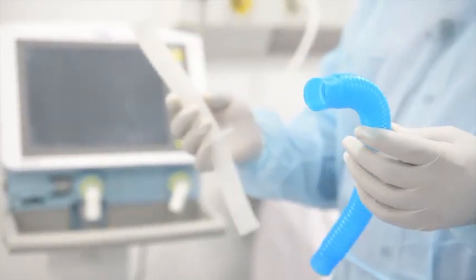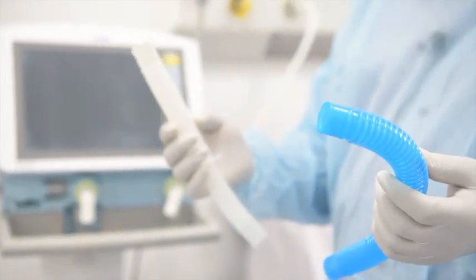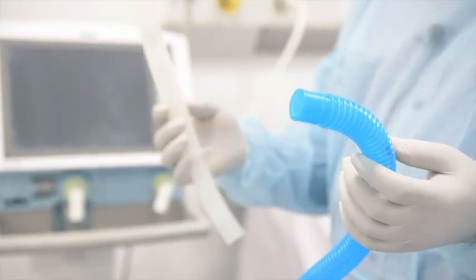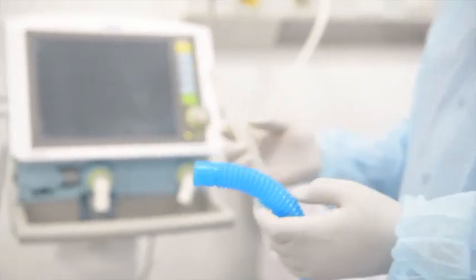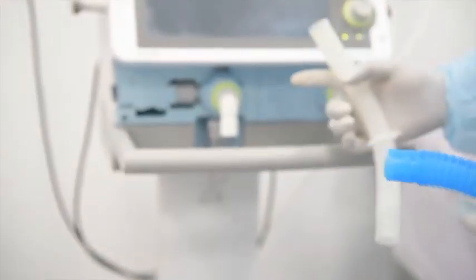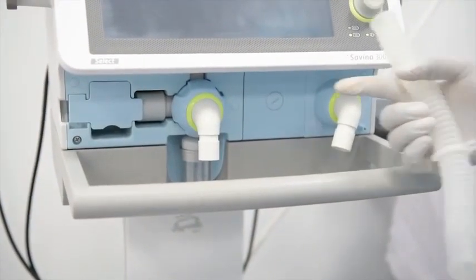You need two short ventilator circuits. And each of these will connect on the arm of the ventilator, inspiratory and expiratory.